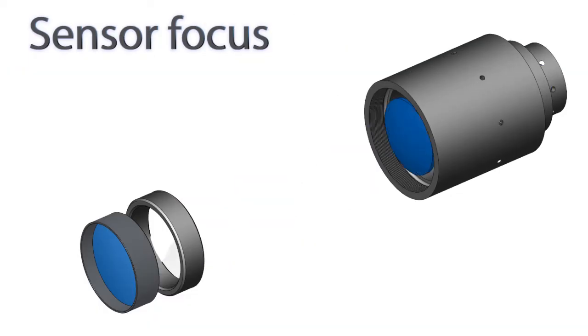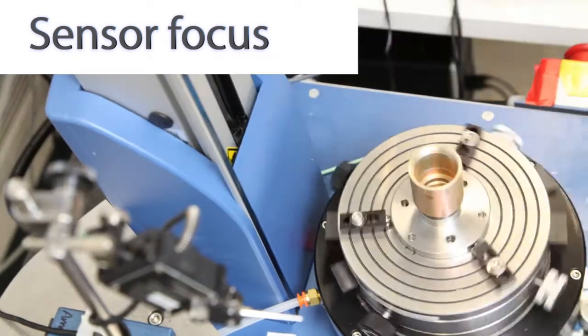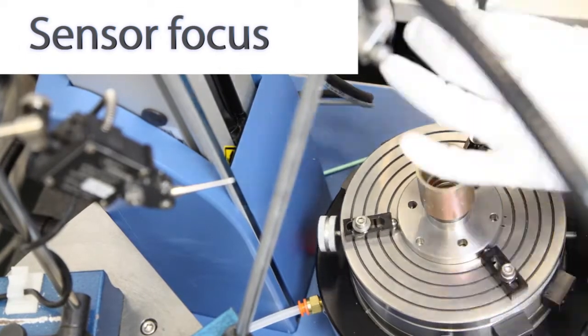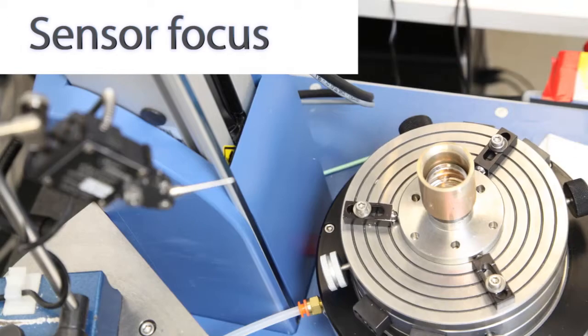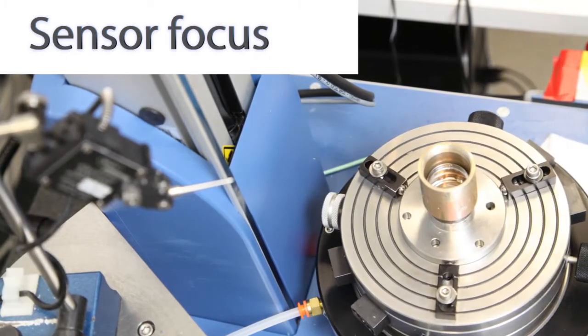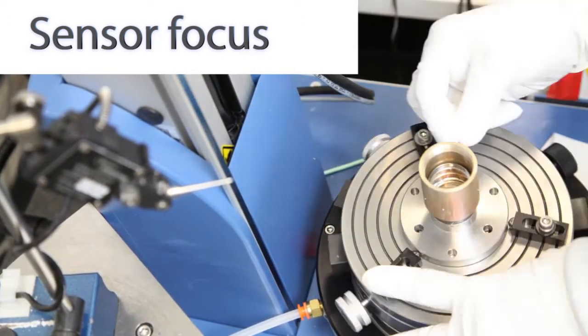The sensor focus components create a sharp image from the patient's teeth upon the imaging sensor. These larger optics are responsible for a significant change of image over a very short distance, and so their precision and placement is very important.